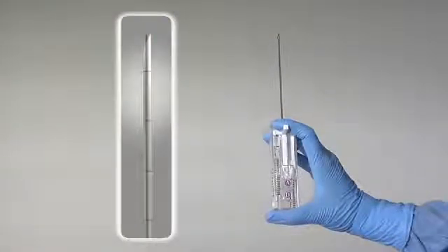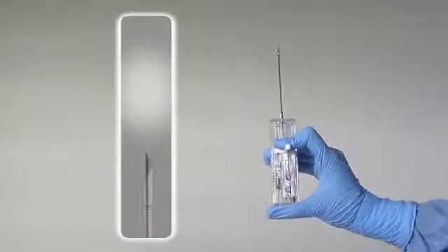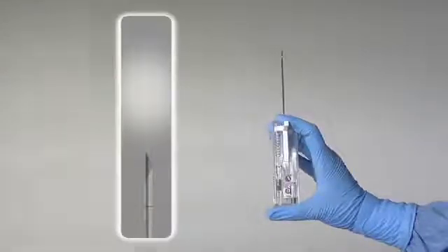To charge the system, simply pull back on the charging arm twice: first to charge the cutting cannula and second to charge the inner stylet.